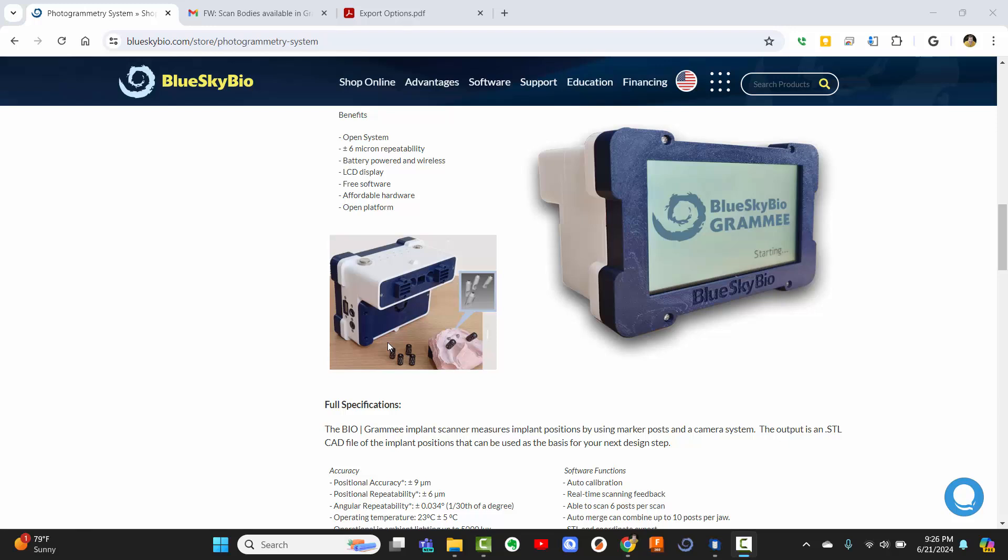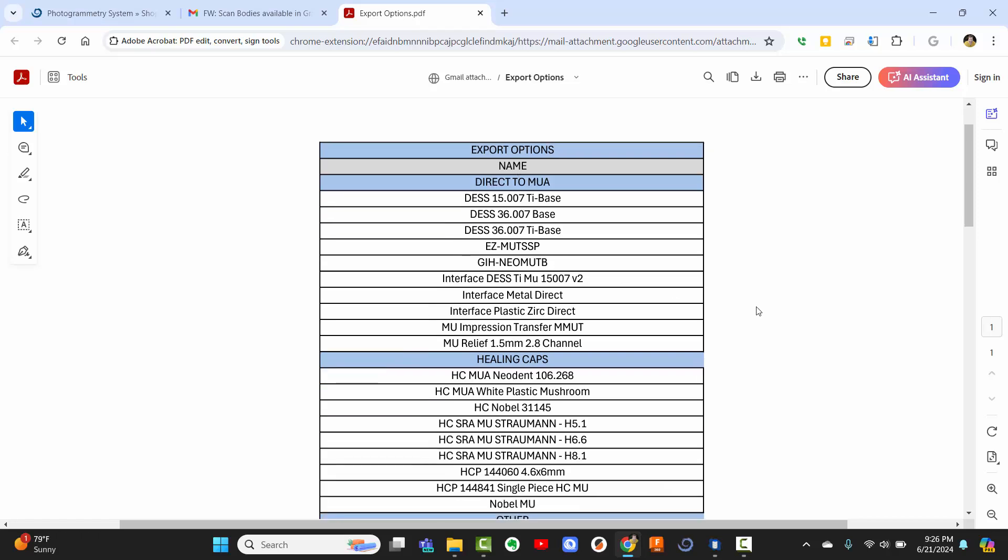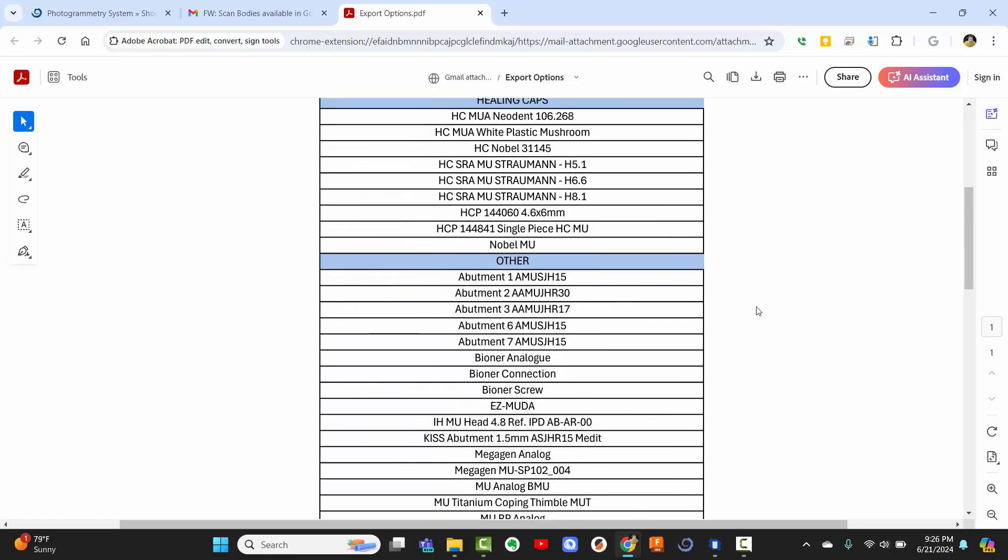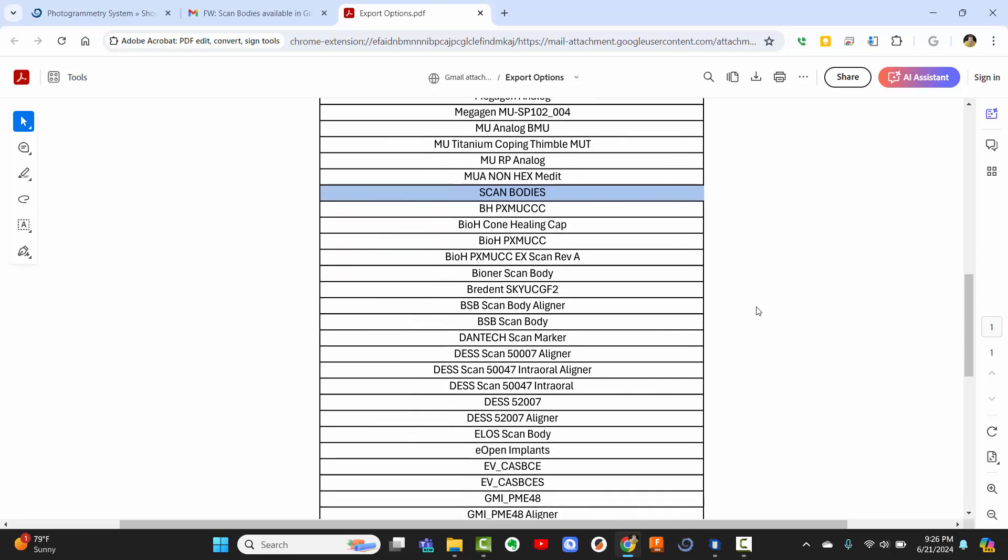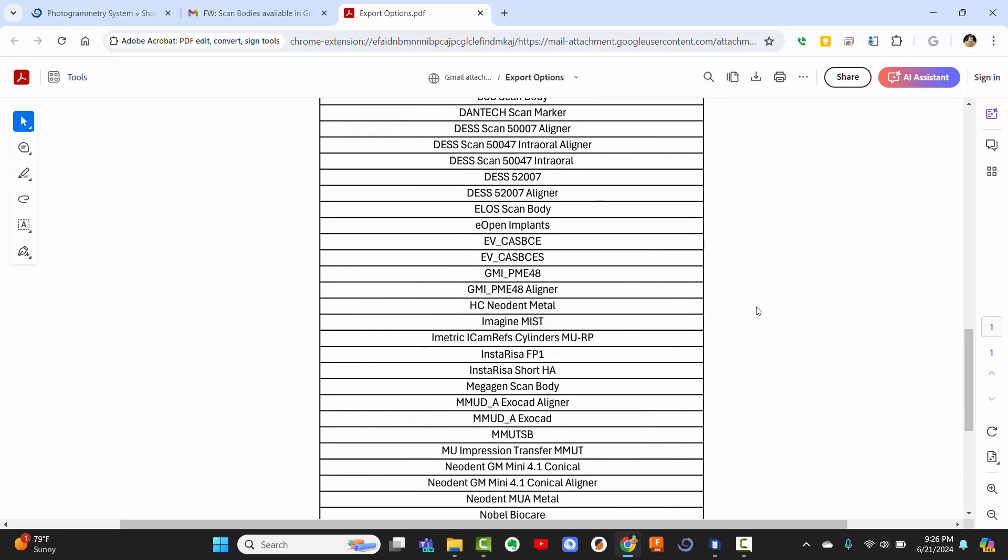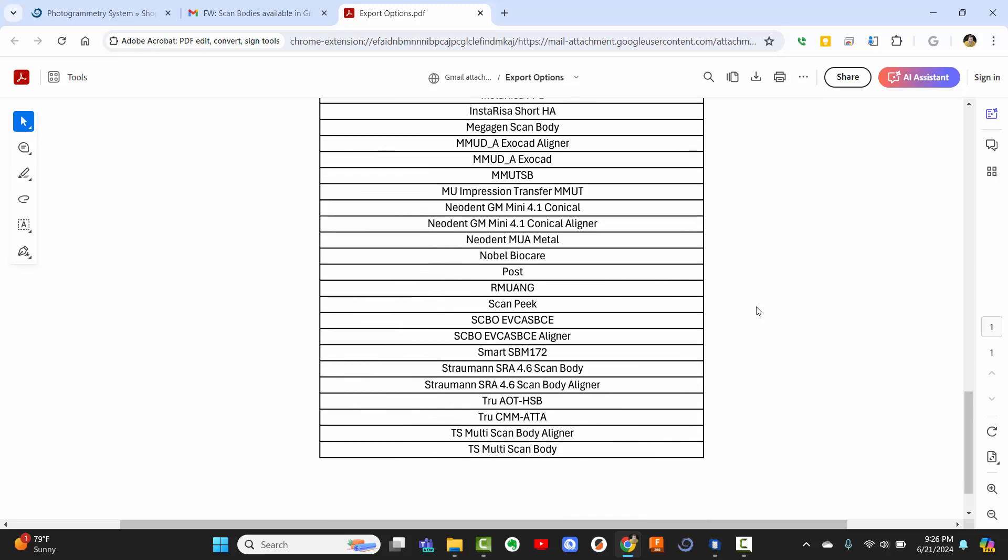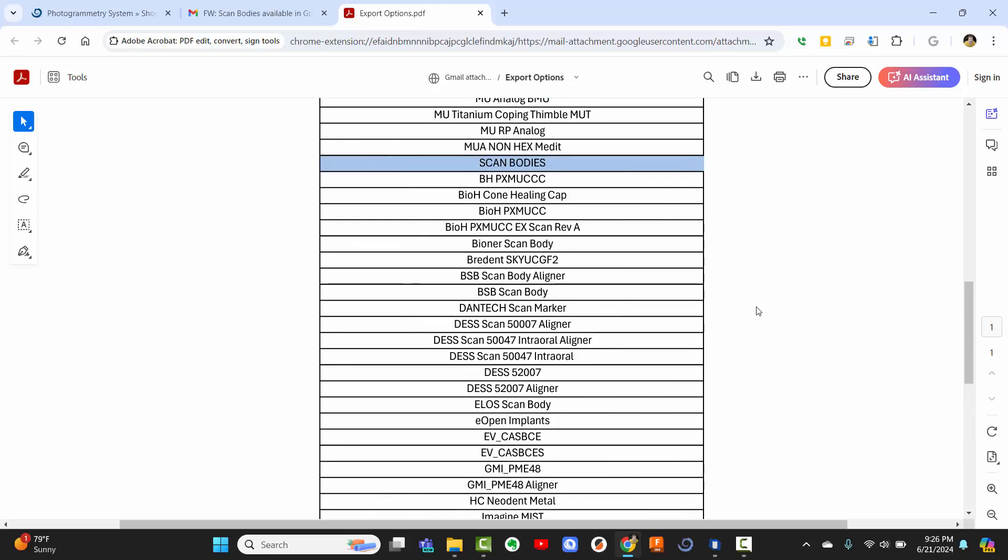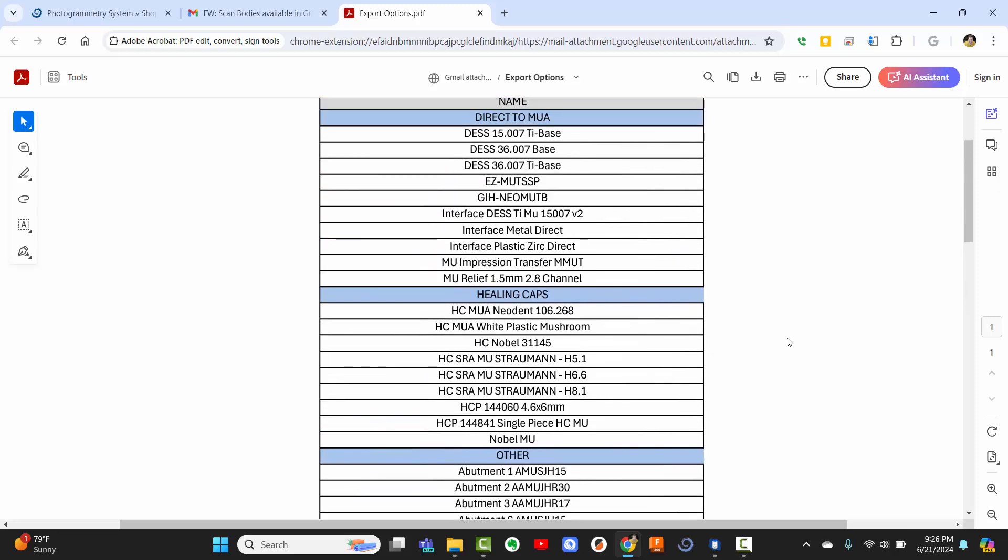I'll be honest, I don't have much familiarity with 3Shape, but I am quite well versed in ExoCAD. So I'm going to show you two things in this video. One is, here is the current list, and I'm not going to go through all these if you want to pause you can. These are all the current STLs you can export. A lot of them are scan bodies, the majority of them are, but there's even analogs that you can export, and a variety of other things, screw channels and whatnot. So it's great, and this will probably cover most of you in what you're using. And this list will grow as more and more are requested, the developer will continue to add more and more.